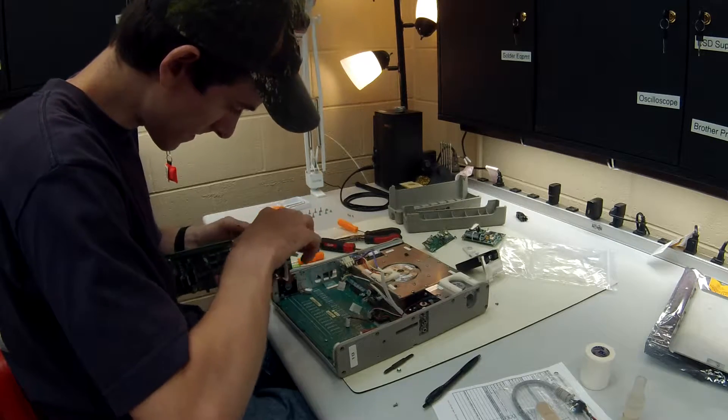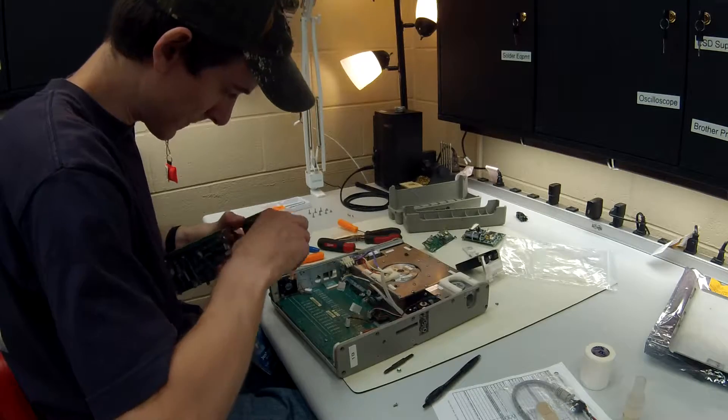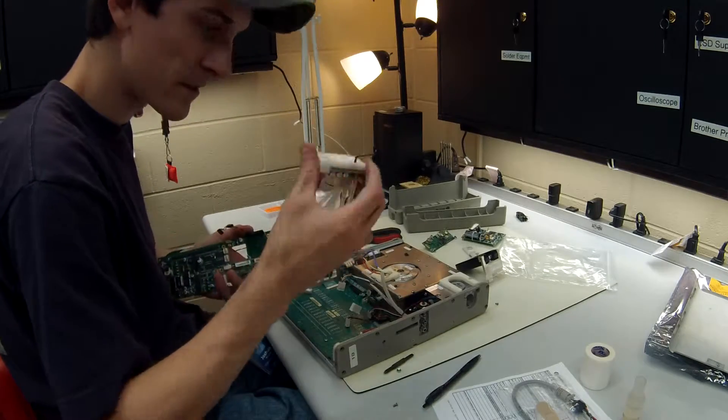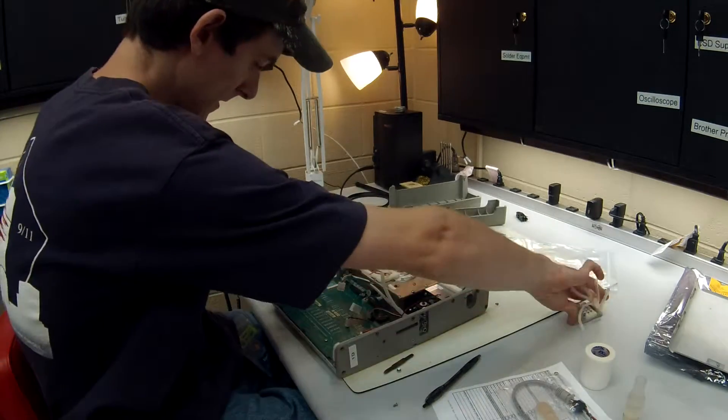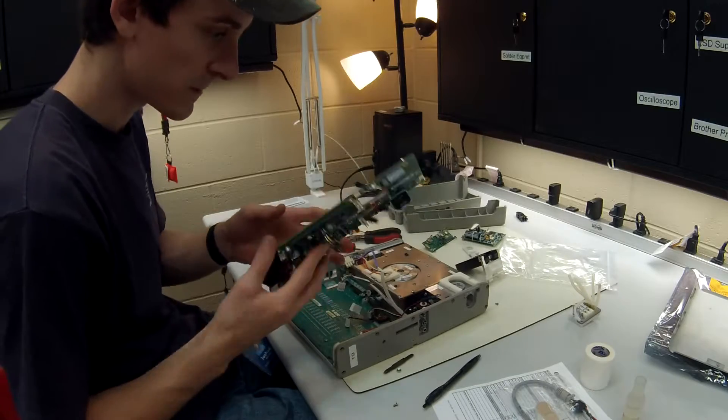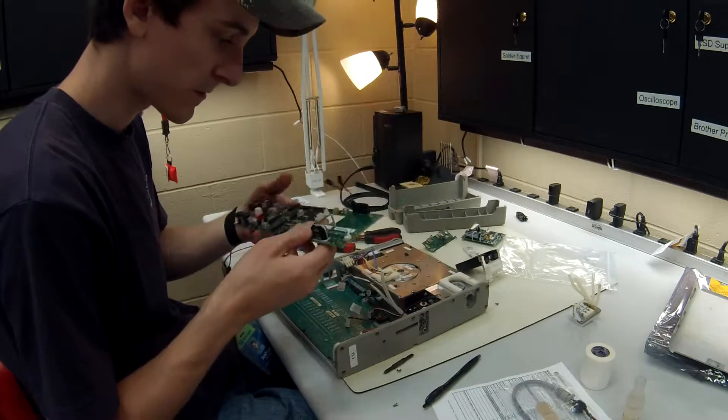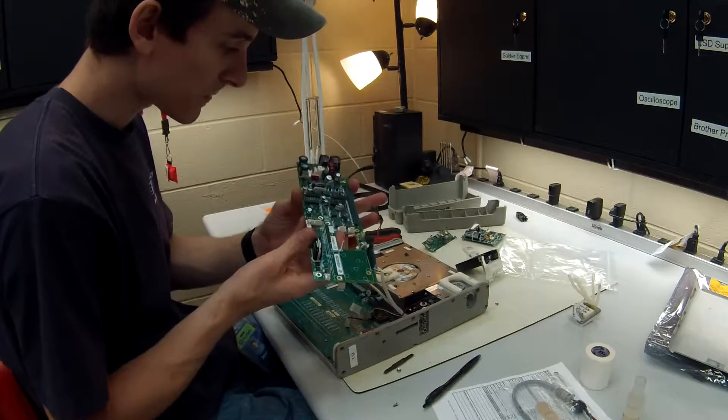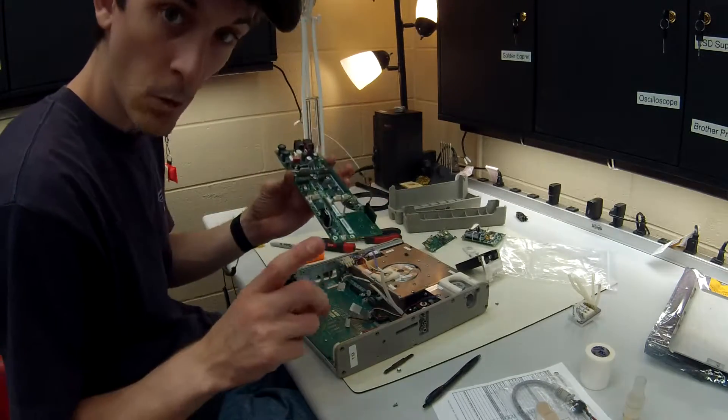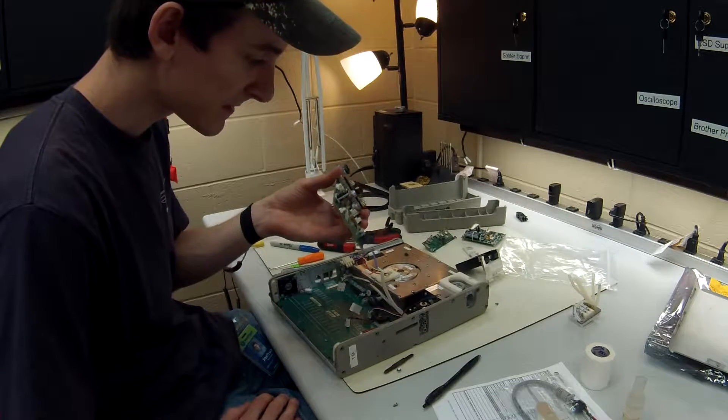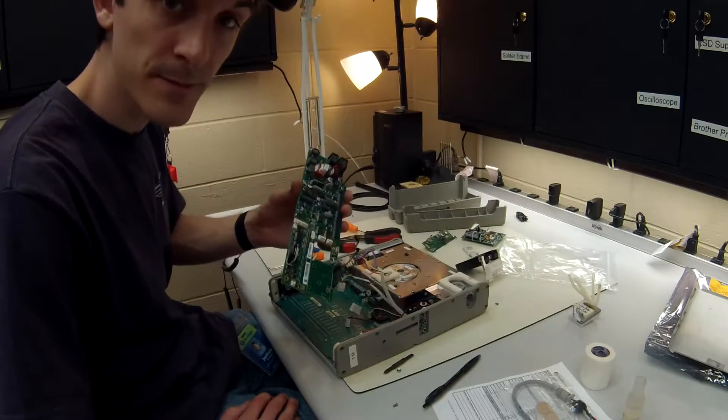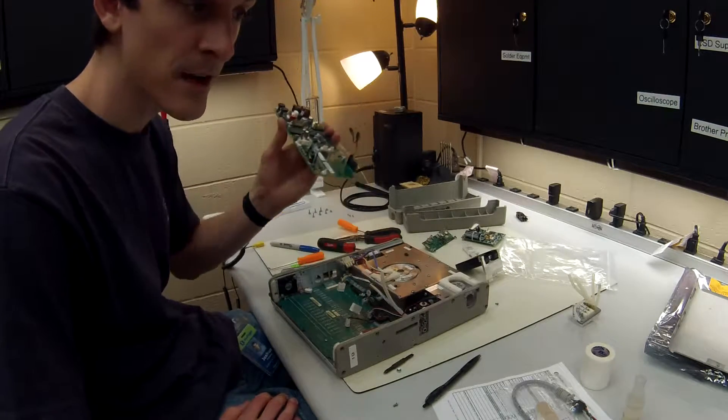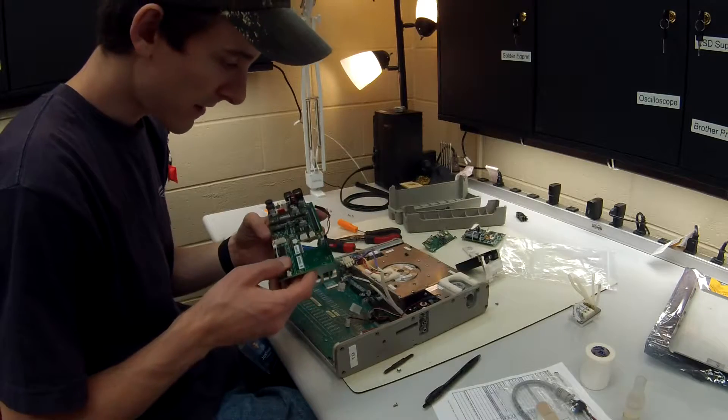So there's our solenoid manifold, this is our old power board, doesn't matter anymore. You can throw it away or, since it technically is good, you can keep it in case you have a problem.